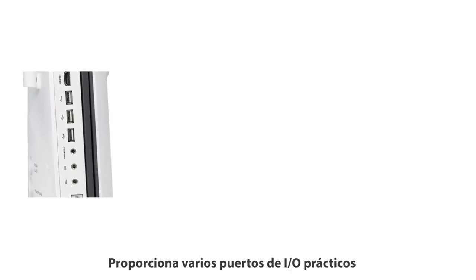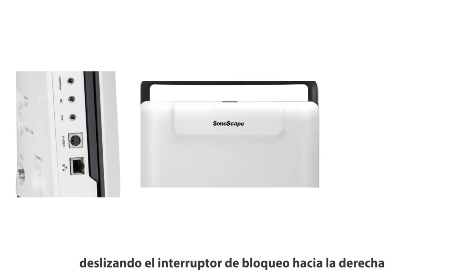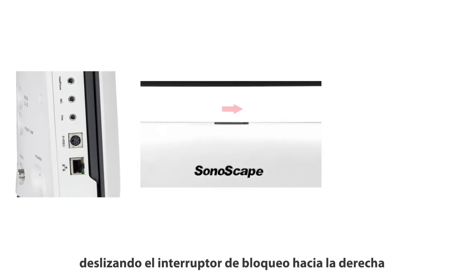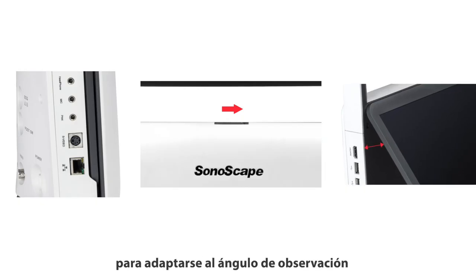It provides practical and various I/O ports. It's easy to open by sliding the locking switch to the right. The monitor angle is adjustable to fit the viewing angle.